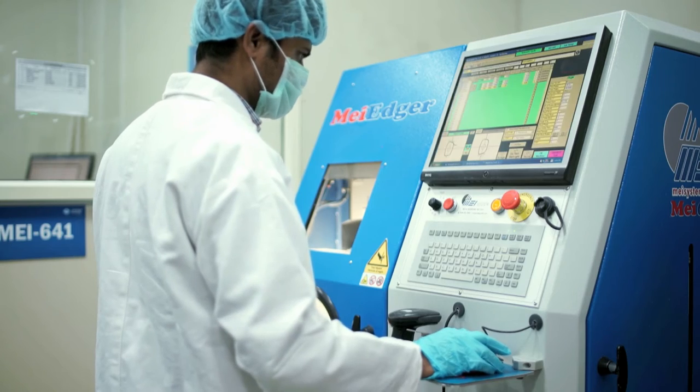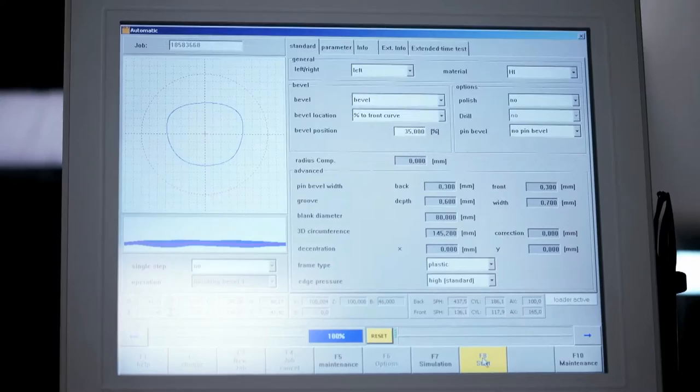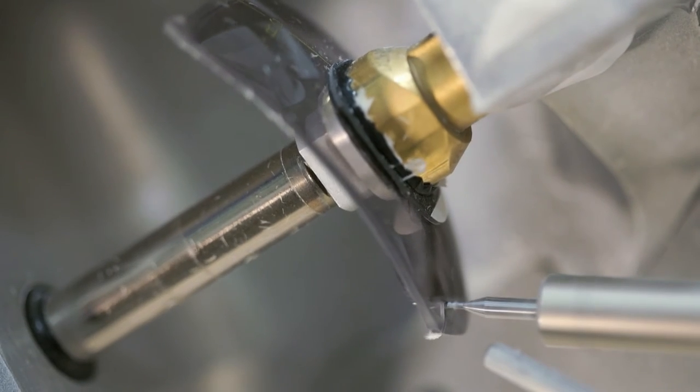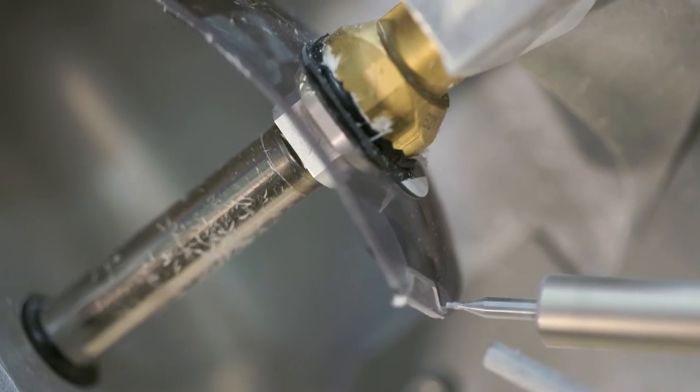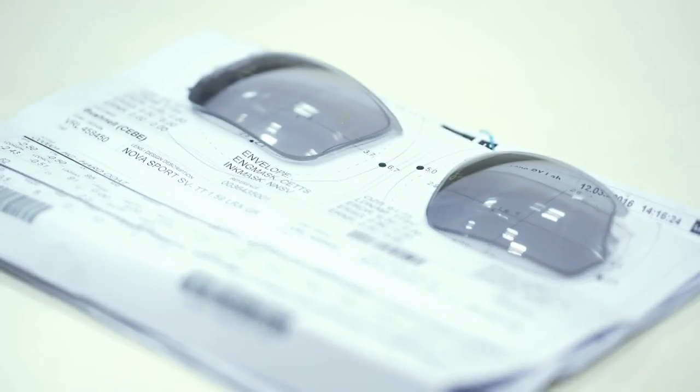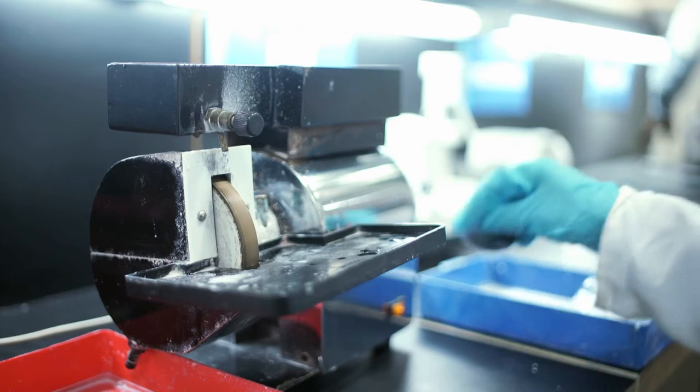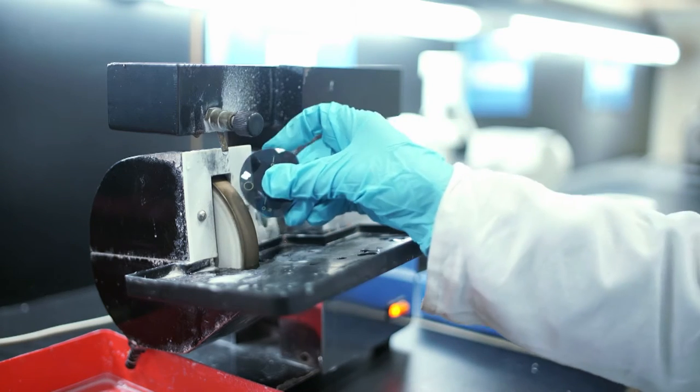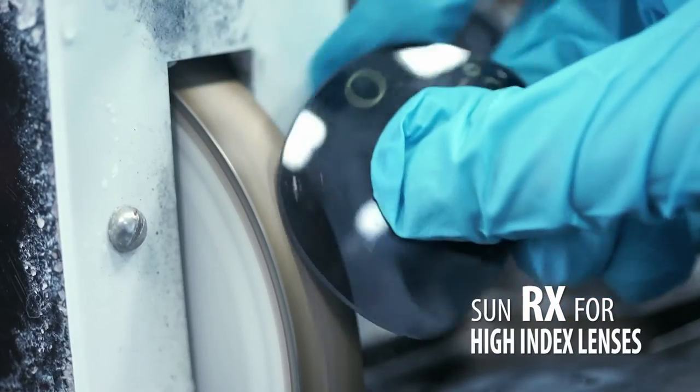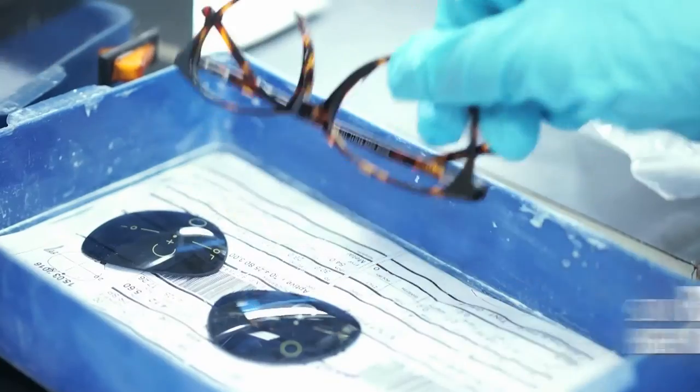Right from edging of lenses with simple or complex shapes, including their drilling, grooving, polishing, and angled cuts for wrap frames, to fitting them in frames, every job is delivered with extreme perfection and in the shortest time span. The lab also specializes in sun RX for high index lenses.